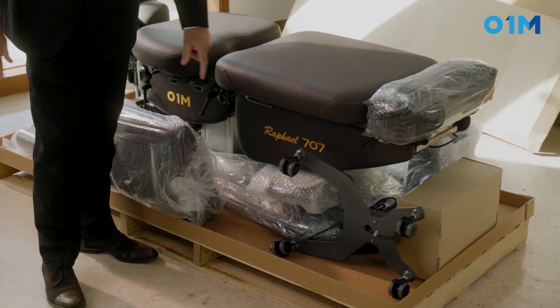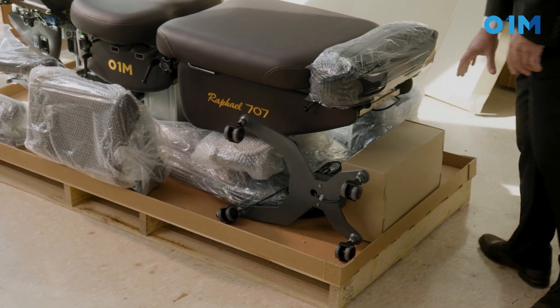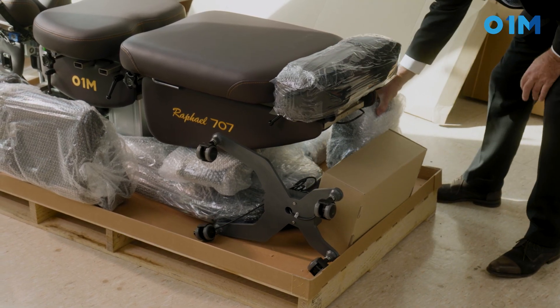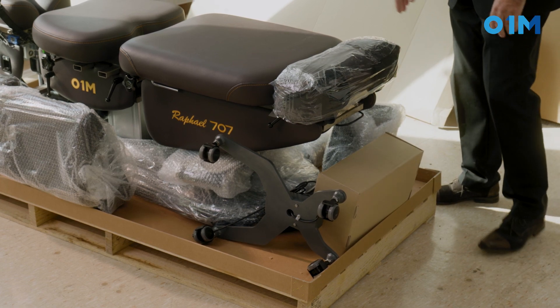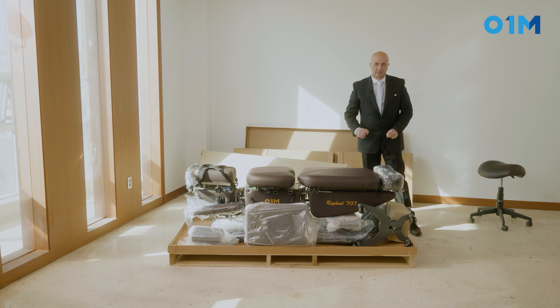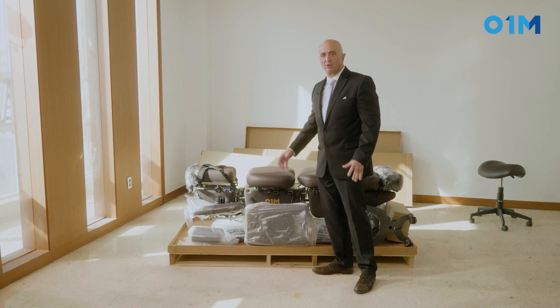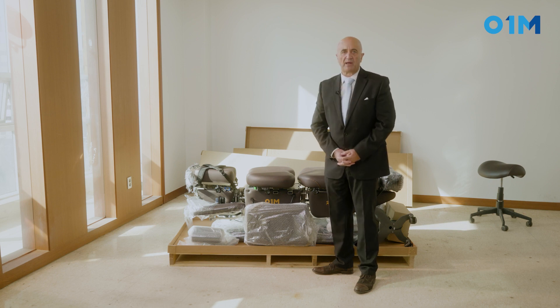Here are the stands coming for the touch screen. Here is your foot pedal and on the back — you cannot see it yet — the whole screen is right there. Those are the elements of the table that you will have to take apart one by one, put them away, and then be able to set it up properly and quickly.